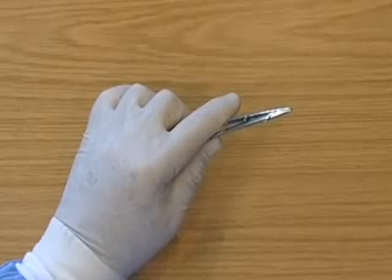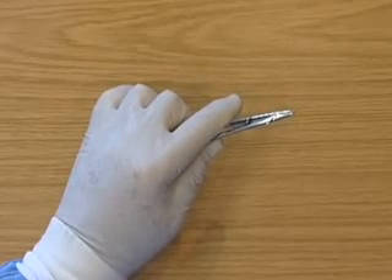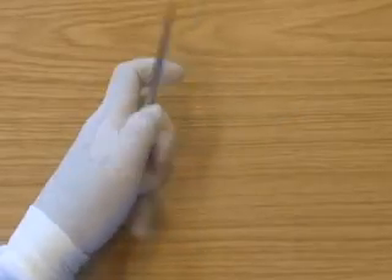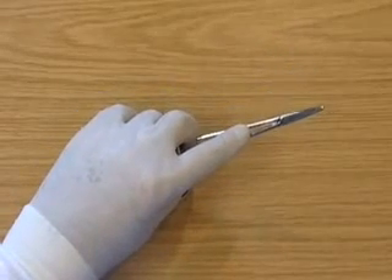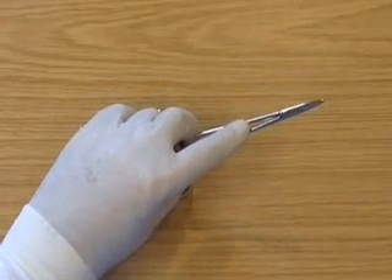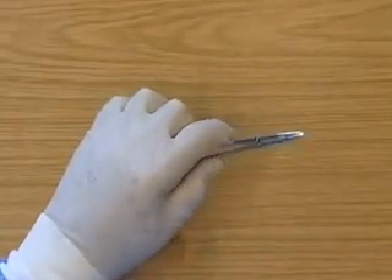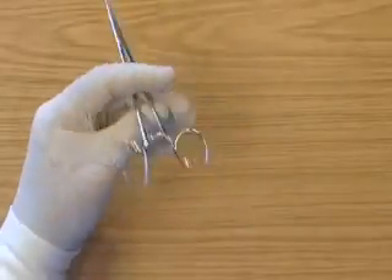This is the left handed palm grip, used for inserting the needle. It is necessary to change to the standard grip to unlock the needle holders. Or from the palm grip, going to the reverse surgical grip to unlock the needle holders.